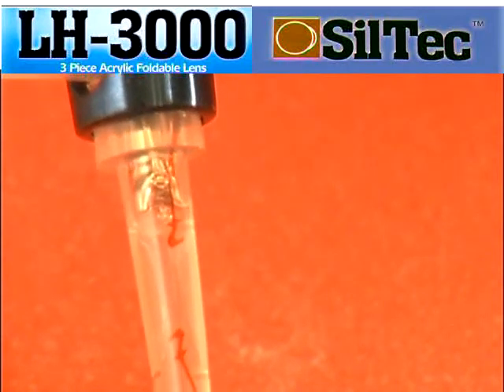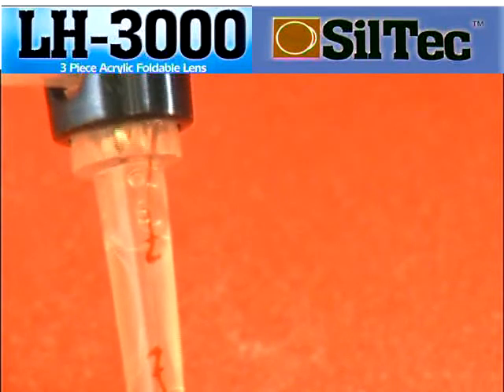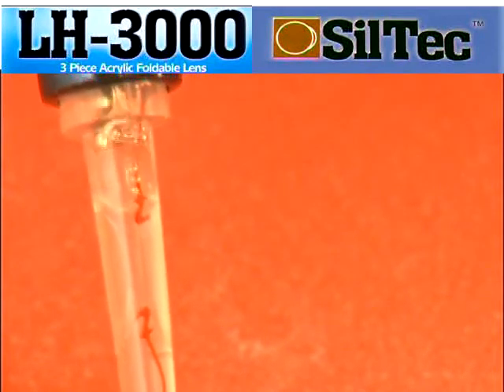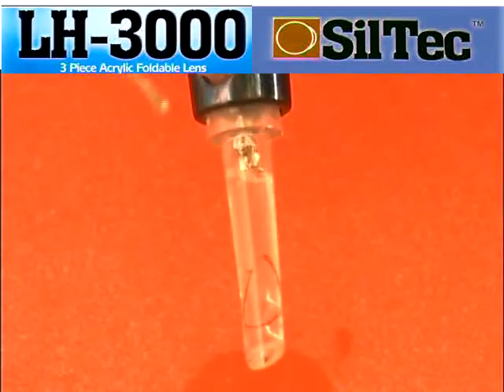To make sure that you are pushing on the optic, quickly pull the plunger back about 3-5mm and push back again. If the lens is sucked back at the same speed as the plunger, then it has probably trapped the haptic. Repeat the pulling and pushing 3-4 times, and if the lens is still moving back, start the whole process again with a new lens.